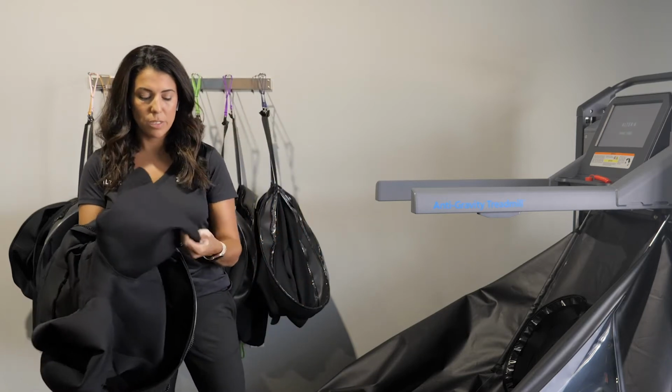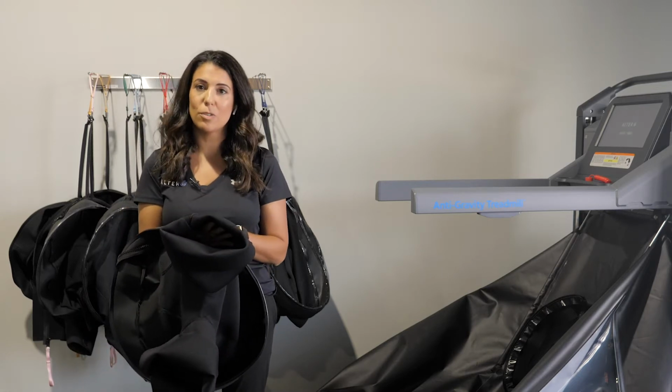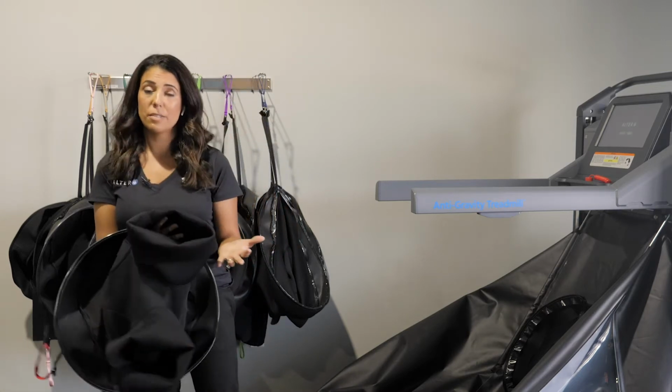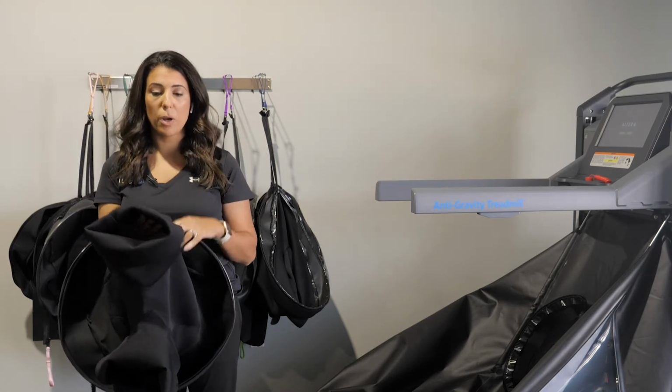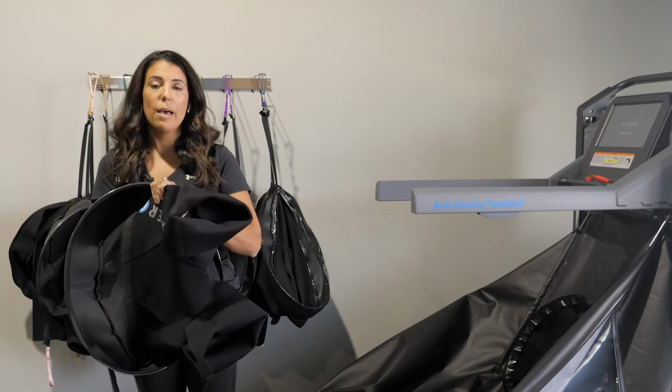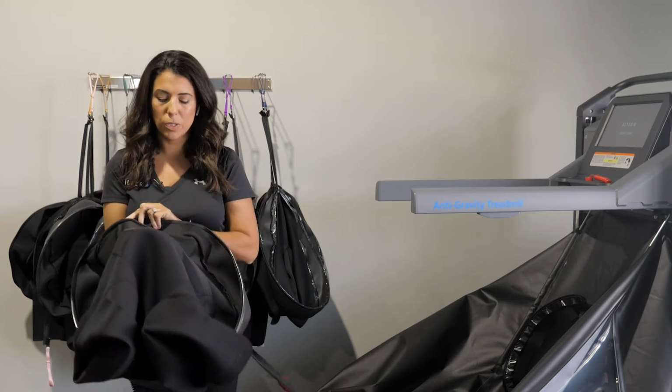It's important, especially in these times, to just quickly discuss disinfecting the shorts. They should be cleaned and disinfected. They can be cleaned between patient use simply by spraying and saturating the neoprene with various disinfectants that we have a full list of in our short cleaning guide.